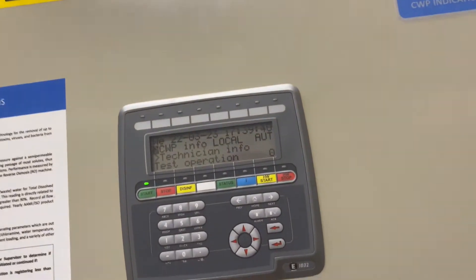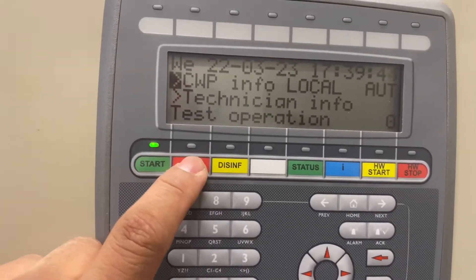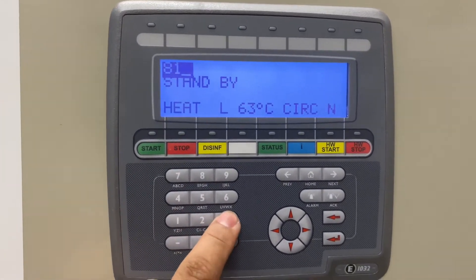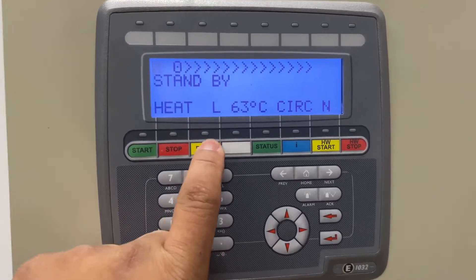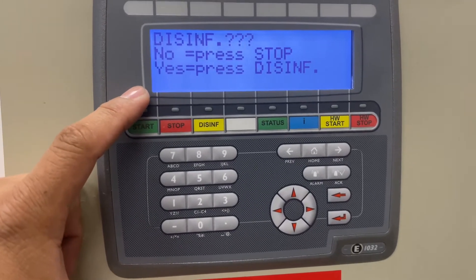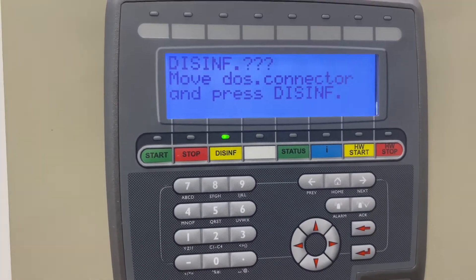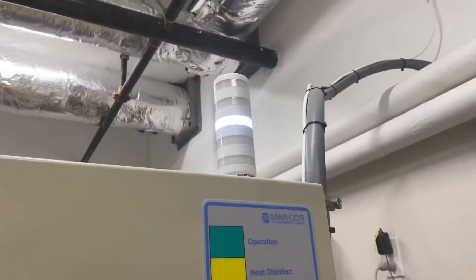To put it in disinfect, press stop on the arrow. Then enter 813 and press disinfect. It asks 'disinfect yes or no' — press yes. If yes, press disinfect again. That changes the connector — move the connector and press disinfect so the light changes.